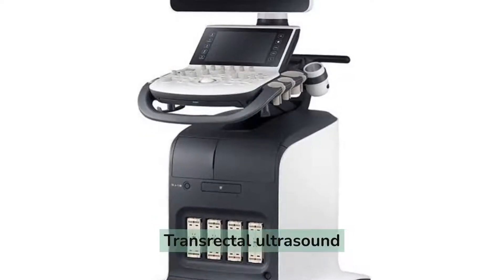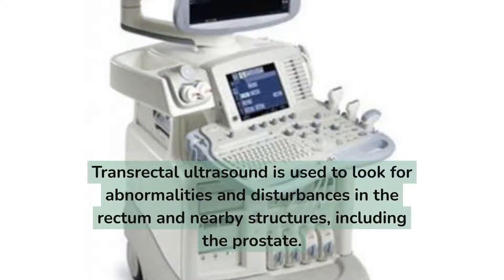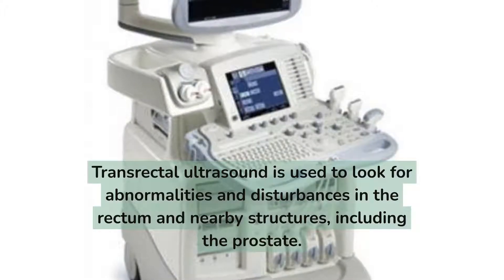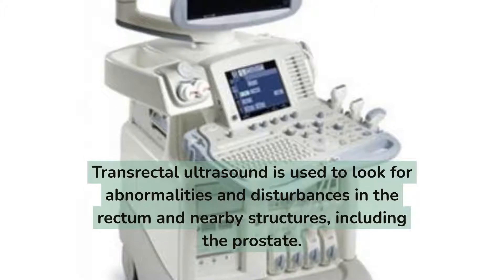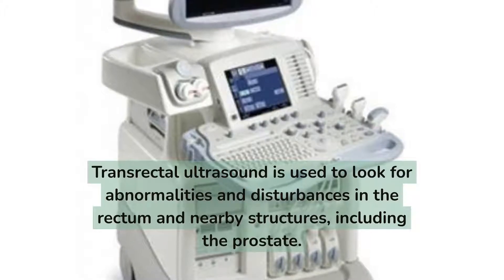Transrectal ultrasound. Transrectal ultrasound is used to look for abnormalities and disturbances in the rectum and nearby structures, including the prostate.